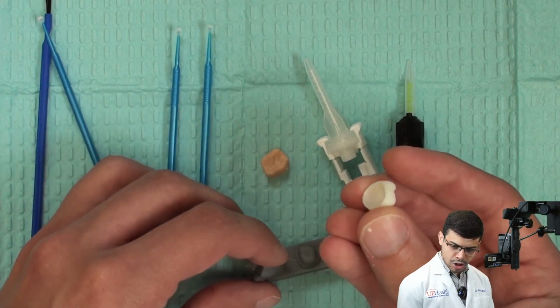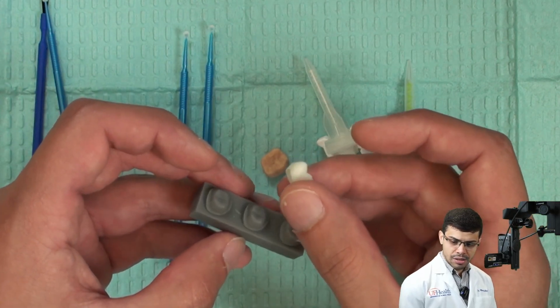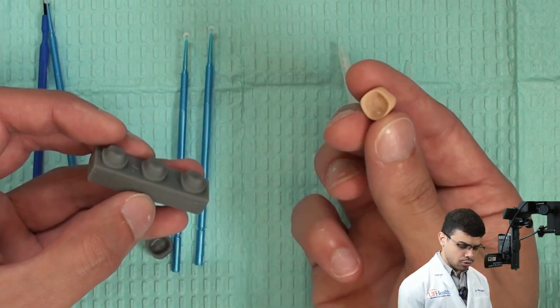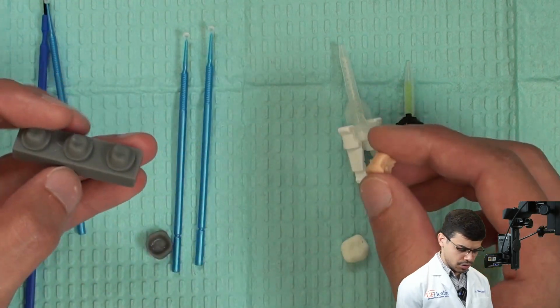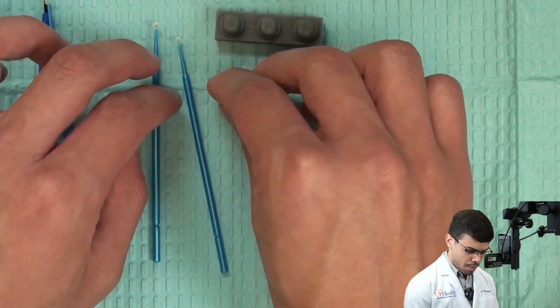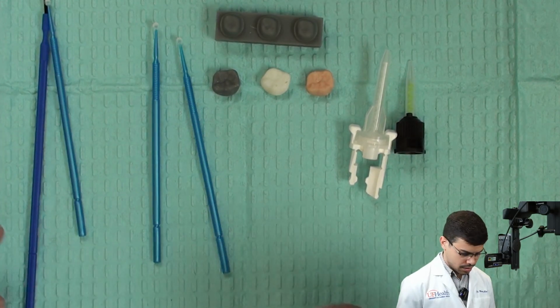The white will represent the classes of zirconia material, polycrystalline ceramics, okay? And this one that is tooth color is going to represent the classes of glass-based ceramics like lithium disilicate in this condition. So have in mind: gray is full metal crown, white is zirconia, and tooth color here will be Emax.